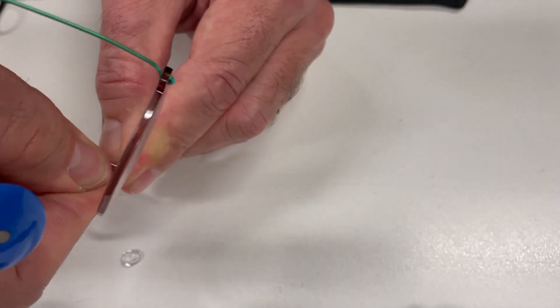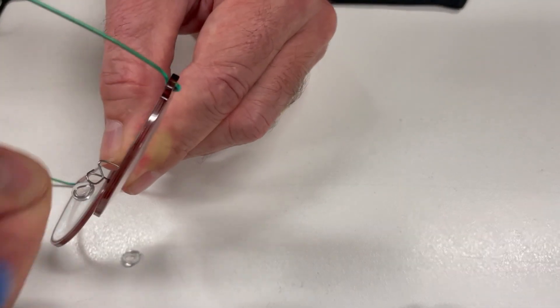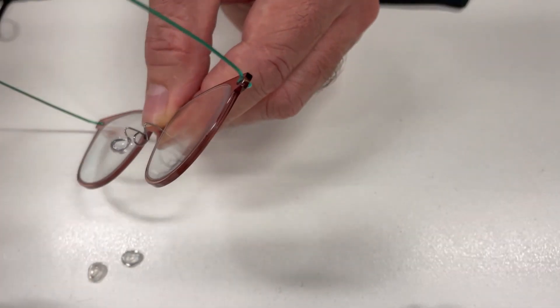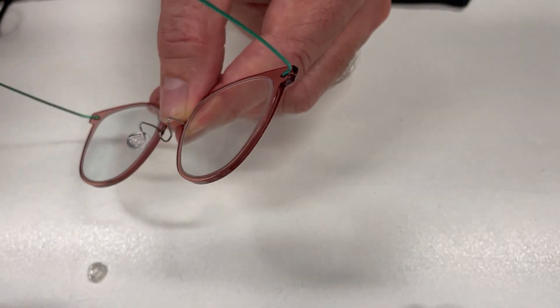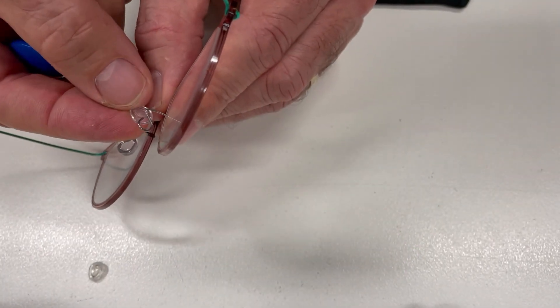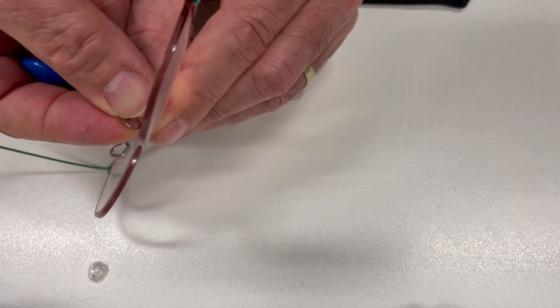We'll open the wire frame and remove the old one. You can see it's discolored. Then we put in the new one. They do sometimes change color and look a little unsightly.